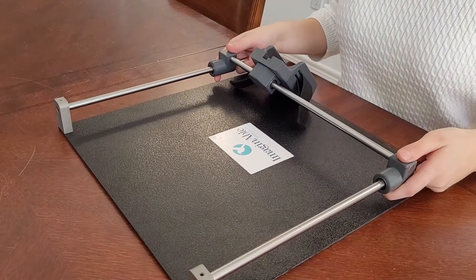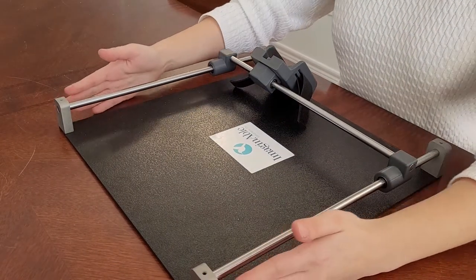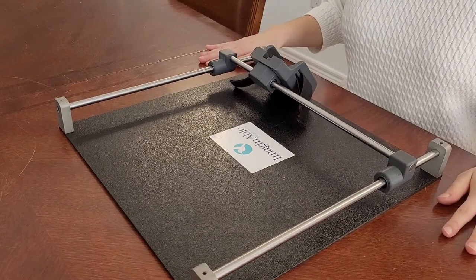To begin, place Guided Hands on a flat and sturdy surface, ensuring that all corners are supported and at a comfortable writing height.